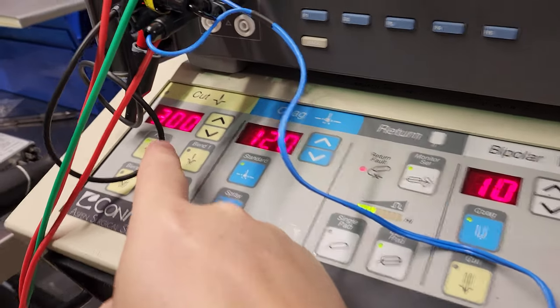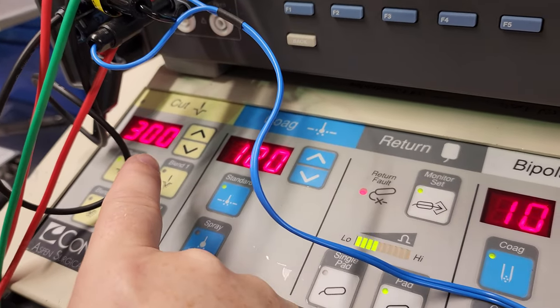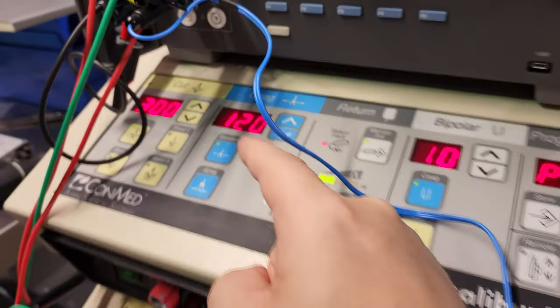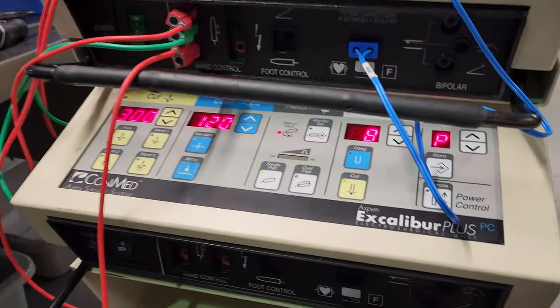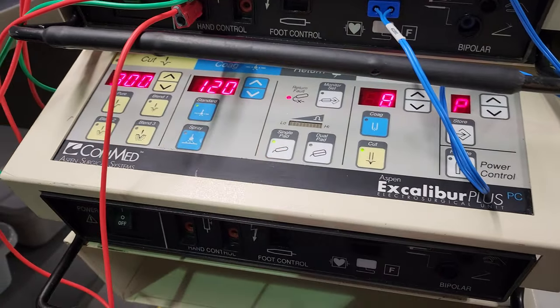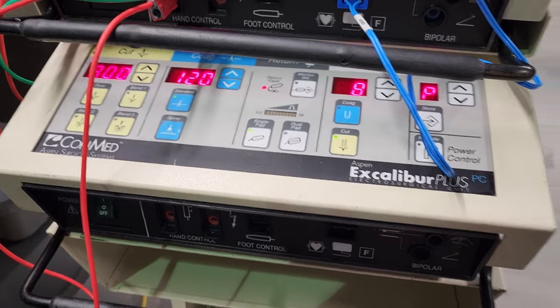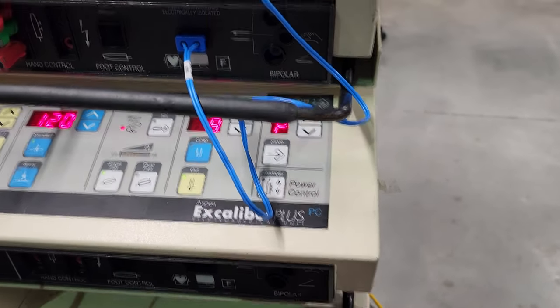Because a doctor that's used to this operating at 55 watts, if you leave it at maxed out settings, he's gonna burn the patient and injure the patient. Look at that, it remembers the settings. And these are still in service, believe it or not.